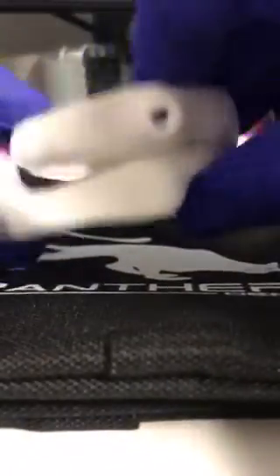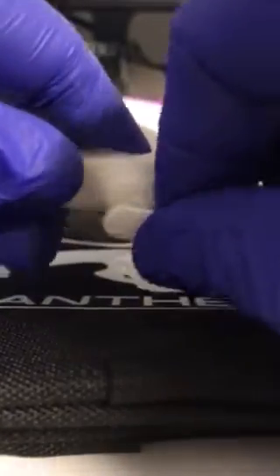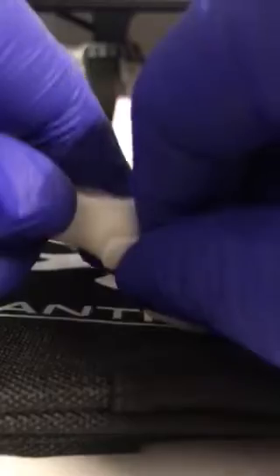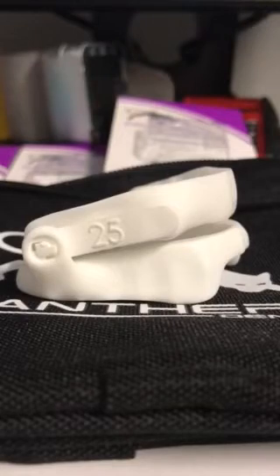There it goes, there's that side. Close it together so it's flat on each other, then get the other side of the wing and do the same thing. Put the hinge inside — the piece in the puzzle. There you go. See, and then what you're gonna do is put them both together like that. Easy peasy and that's it. Thank you.